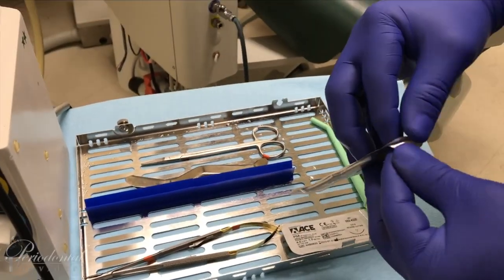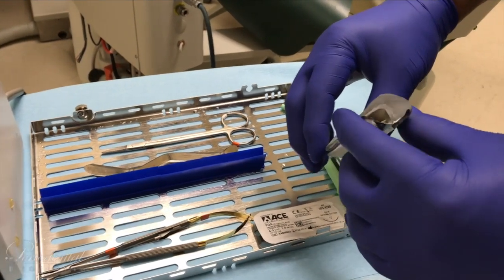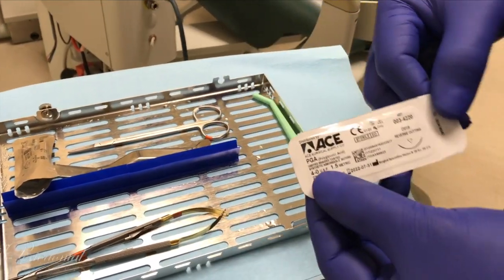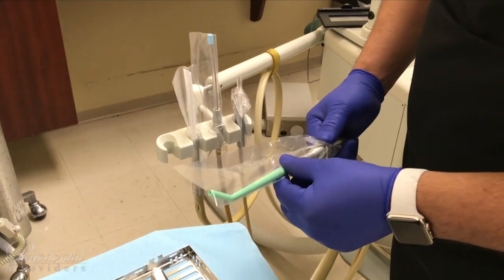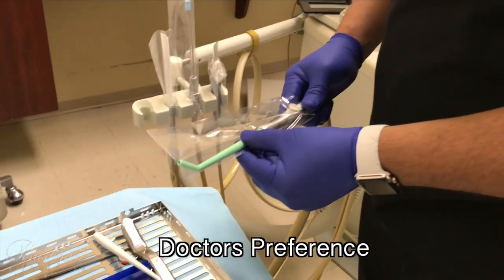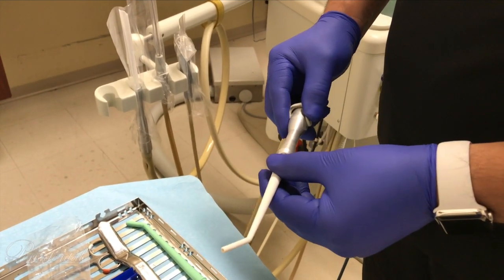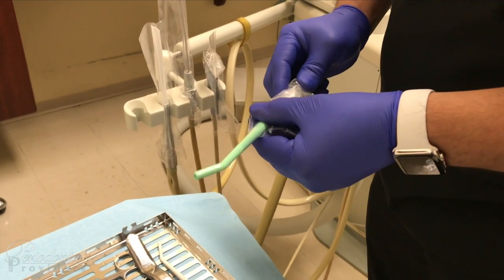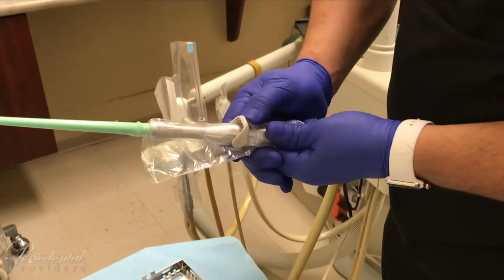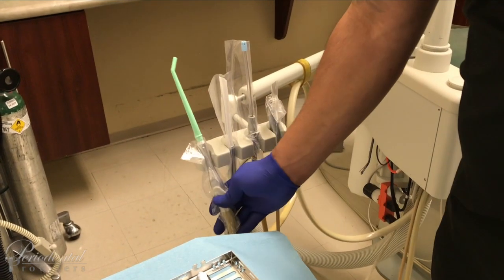A proper way to transfer — just this side. Always make sure that your sutures are opened up slightly, not open completely. The green surgical suctions are used for complicated cases where we don't want to injure the sinus membrane or suction up any tissue. We'll go with the green surgical suction. Make sure your sleeve is placed back on and just pull right through. Keep it at the neck so you can easily function on and off. Always leave a little room up top when turning on and off so it doesn't allow the sleeve to come down onto the connector. Place back and you're ready to go.